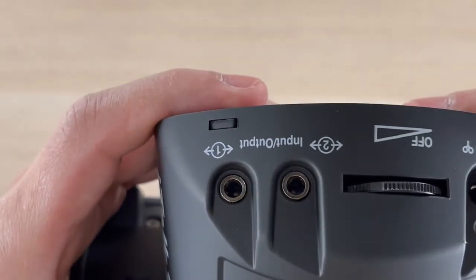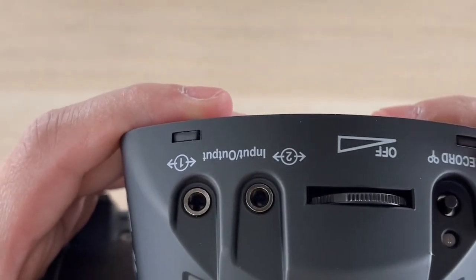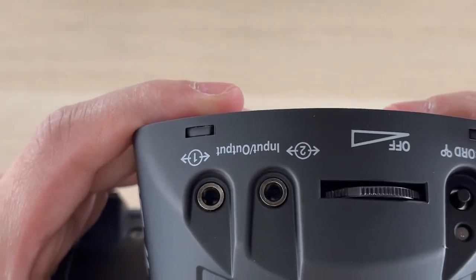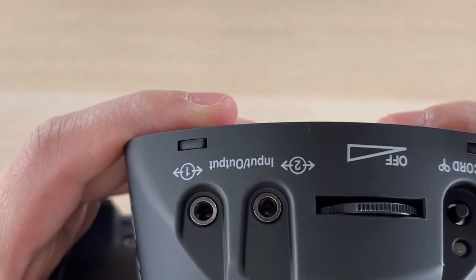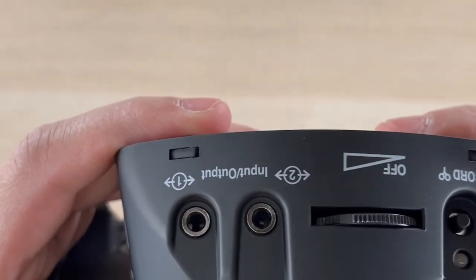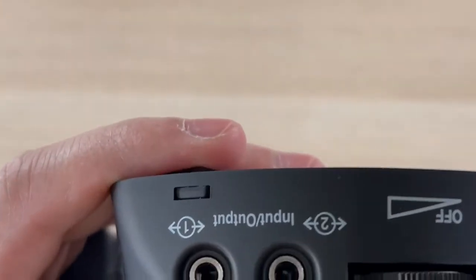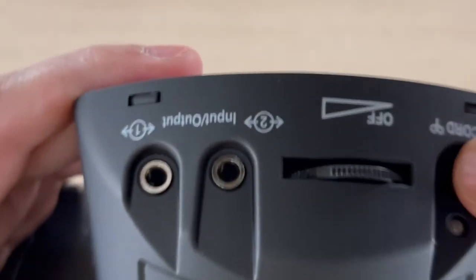To clear all messages, click and hold the record button for approximately 10 seconds or until you hear two beeps. Here is the recording button right here.